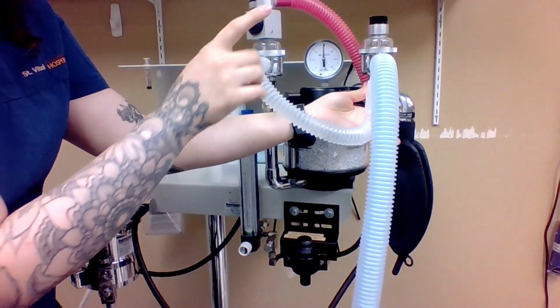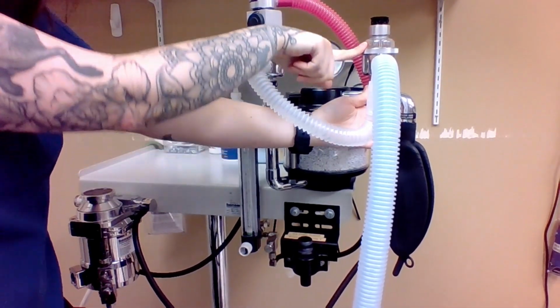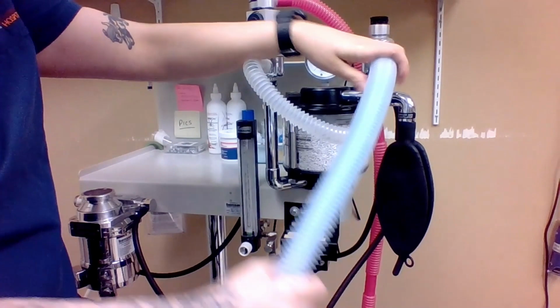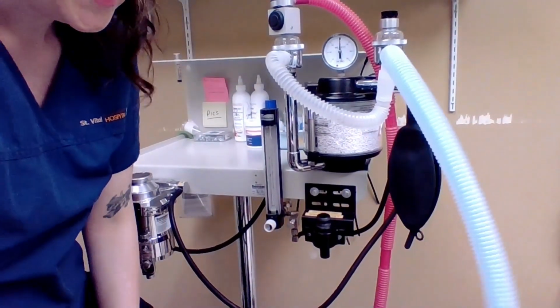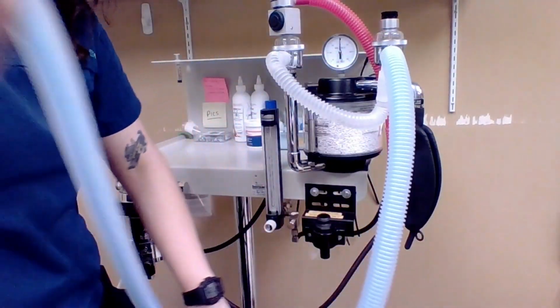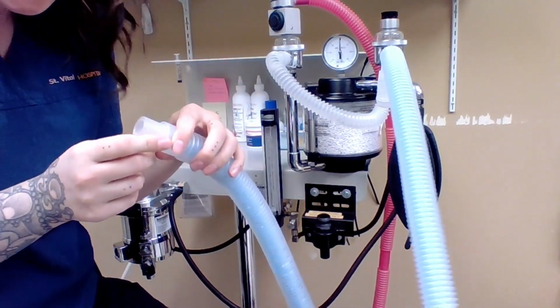And that brings us to our inhalation valves, and then our flutter valves up here as well. So those are the inspiratory limb flutter valves. And then from that point, it connects to our tubing, our hose. This hose, the inspiratory section, is the blue inner tube. So it goes all the way down our hose. This is where it connects to the endotracheal tube to the patient.